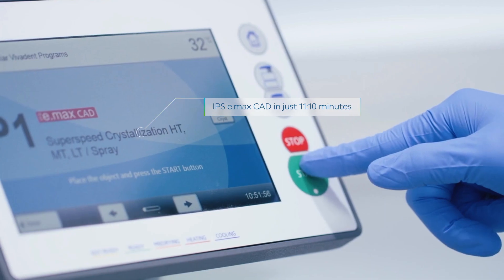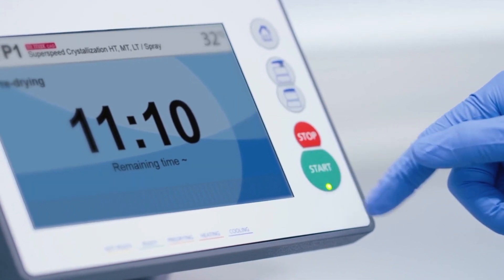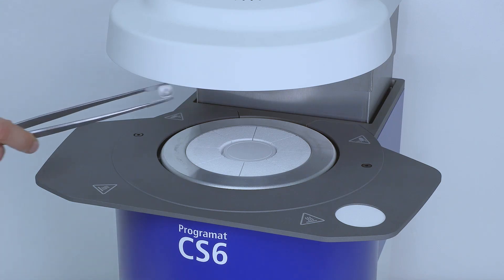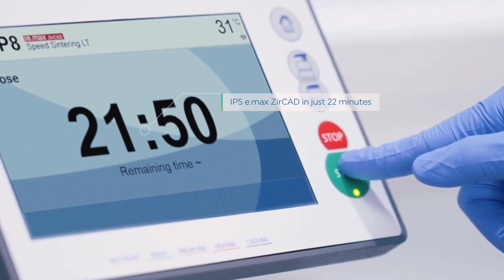This exciting furnace allows you to crystallize IPS eMAX CAD restorations in just over 11 minutes. Meanwhile, your zirconia restorations can now be sintered faster in just 22 minutes with improved aesthetic results.